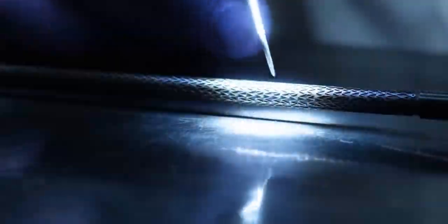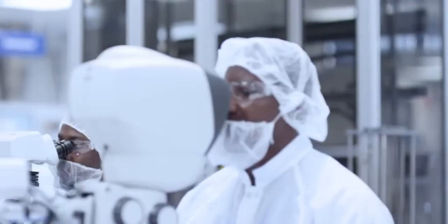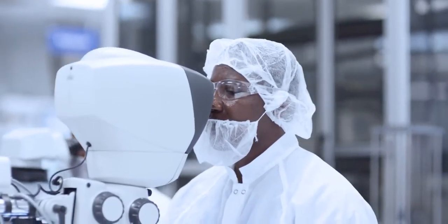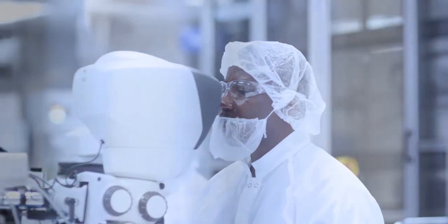We've come a long way to better understanding the disease state in the SFA. We're using bare metal stents for more challenging cases, treating more patients than ever before. So what does the ideal treatment look like? It should be easier on everyone involved, patient as well as physician.